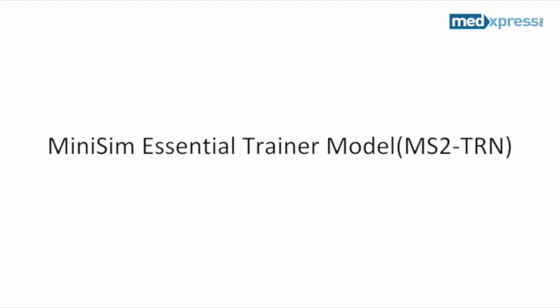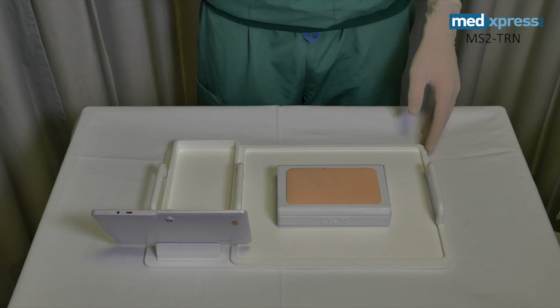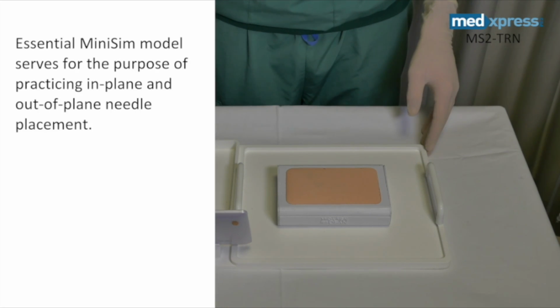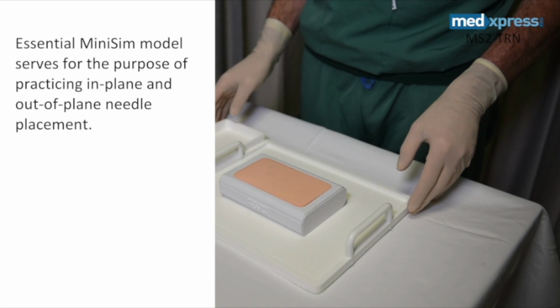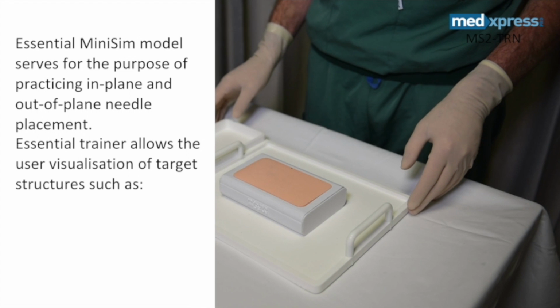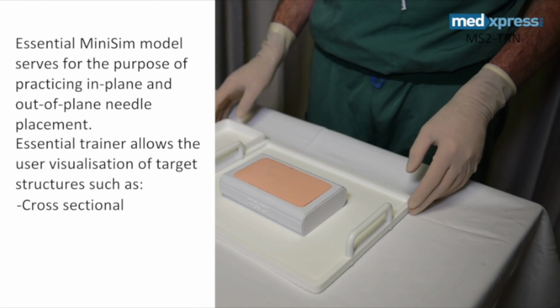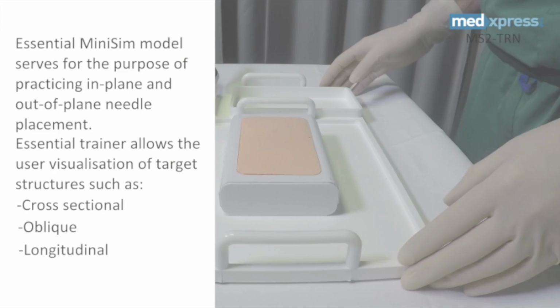Welcome to the Essential Trainer Mini-Sim demonstration. The Essential Trainer Mini-Sim is an extremely valuable tool for the practice of proper in-plane and out-of-plane needle placements, as well as visualizing target structures in various planes, such as cross-sectional, oblique, and longitudinal views.